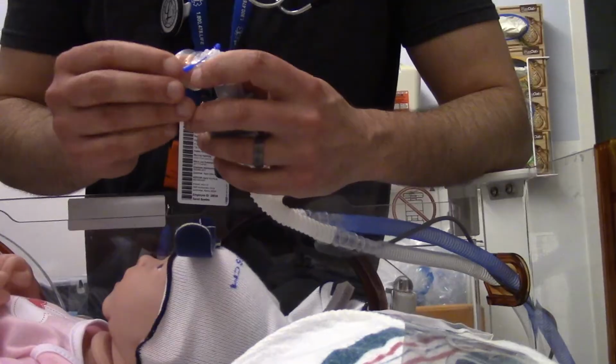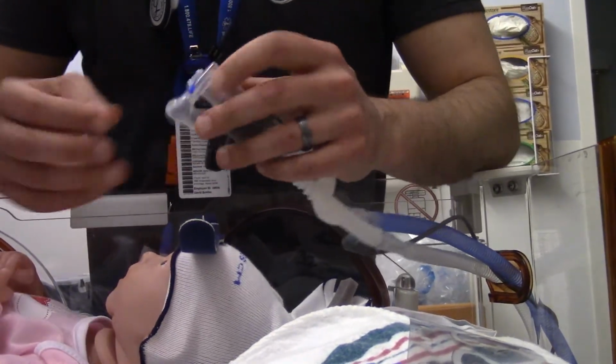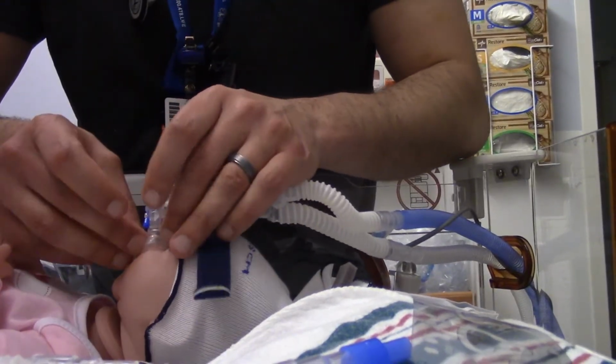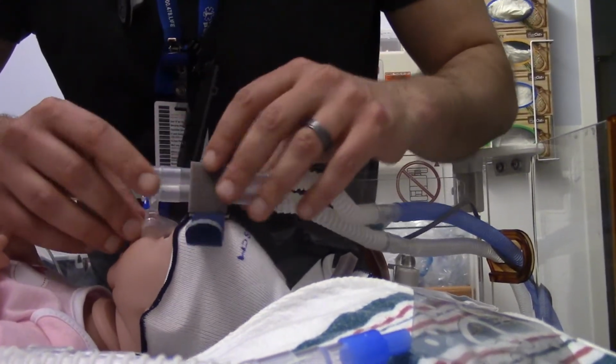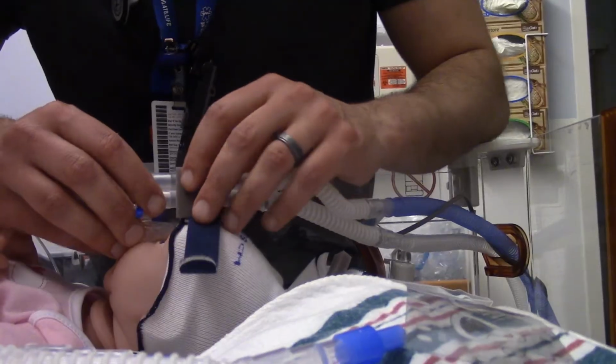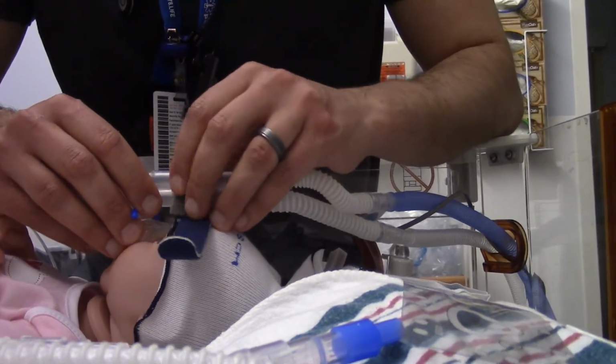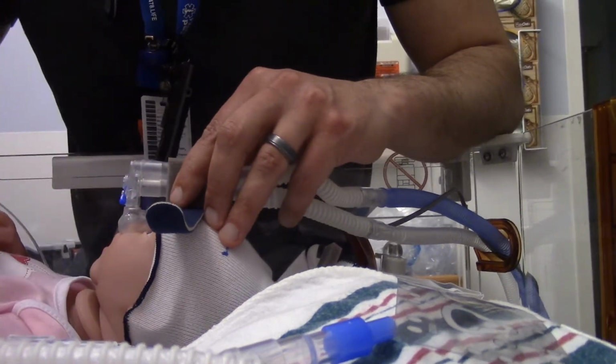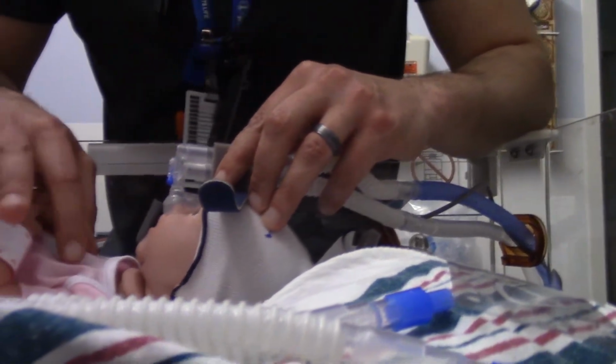and you're all strapped up and we've got the bubble going. Like I said, this child is not a hospital dummy. It is a cheap baby doll at Fred Meyer's. The only way to do it is auscultating the lungs.